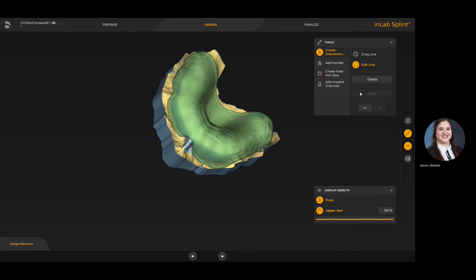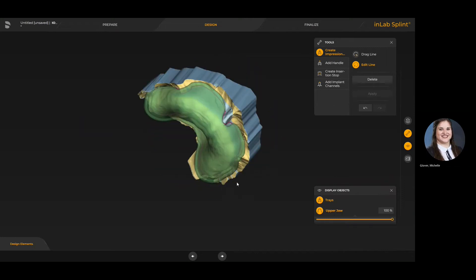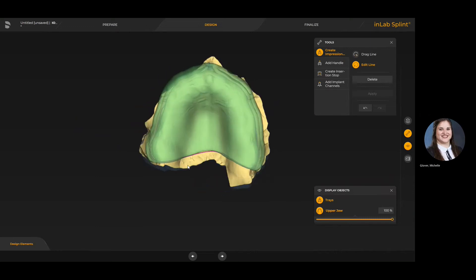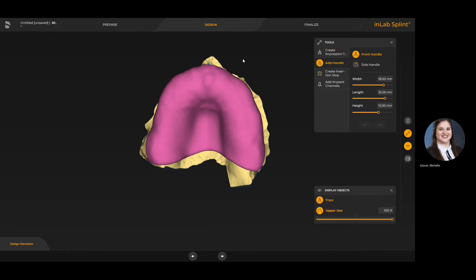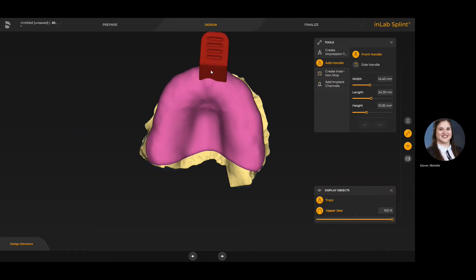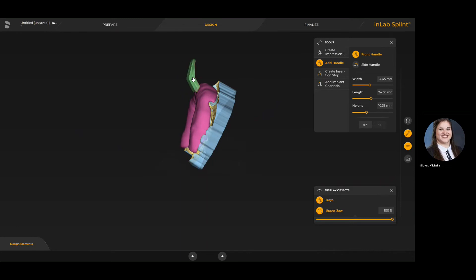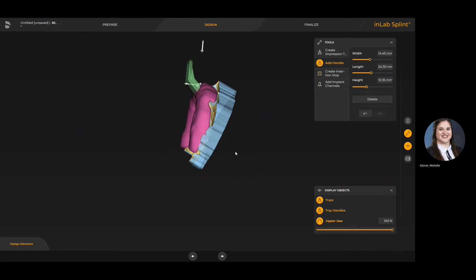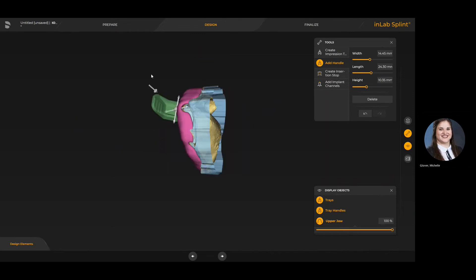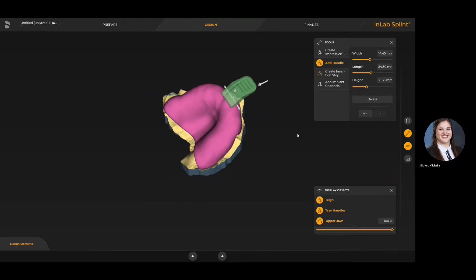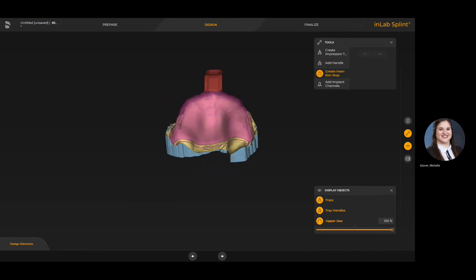Once the actual tray is complete, you'll be able to add several aspects. You can add a front or a side handle, and when you come to add handle it defaults to a front handle where you can control the parameters — how long it's going to be, how wide, and the height as well. Once you're happy, double click to place the handle, and then with a single click you can change the angulation or move it around. At that point you'd still be able to change any of the parameters like height and width.